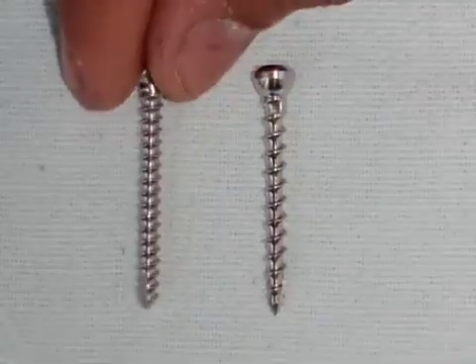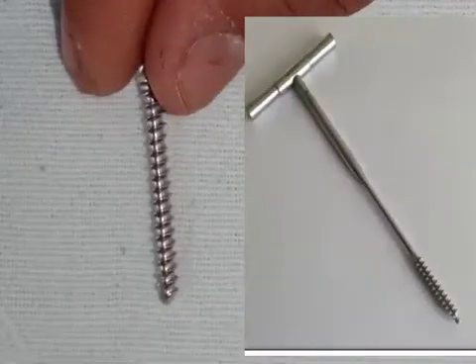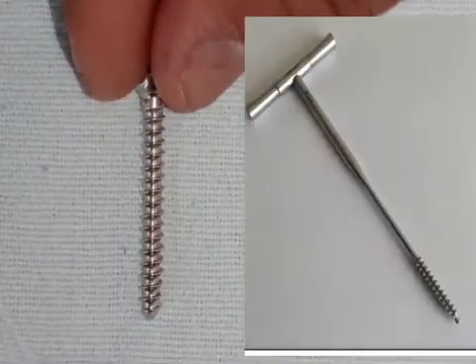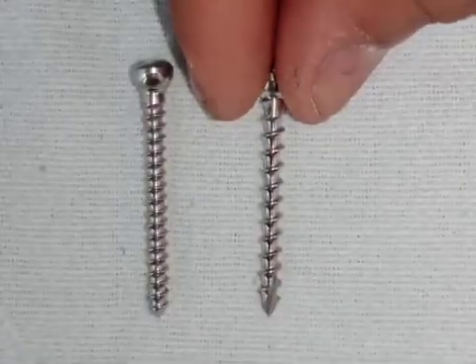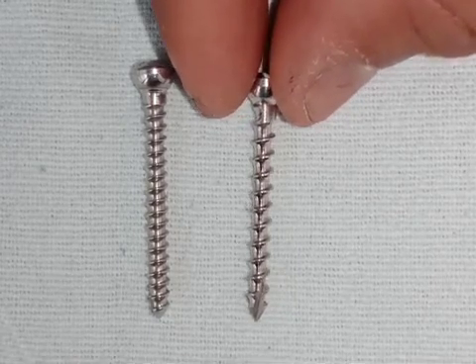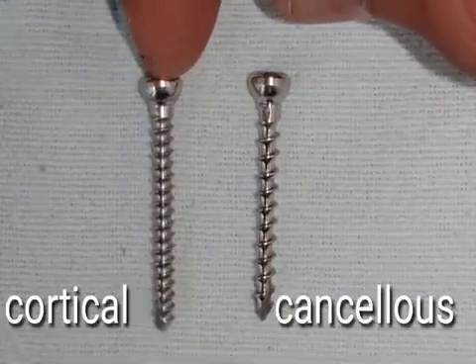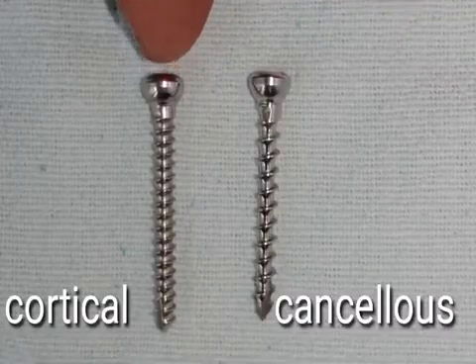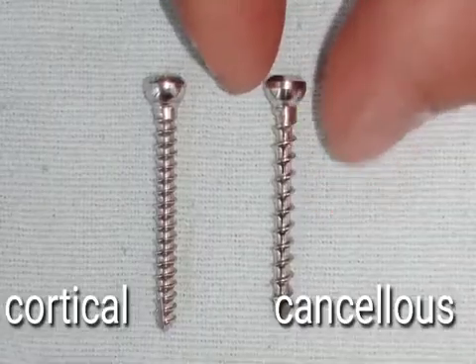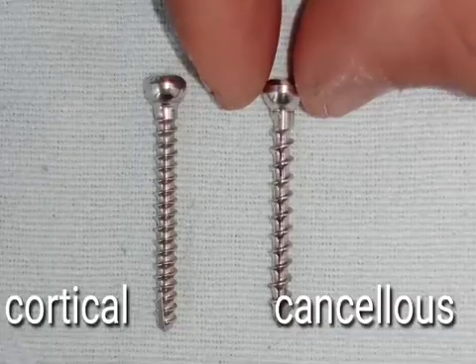The cortical screw cannot be inserted into the bone just like that. You have to use an instrument called a tap, or internal thread cutter, to cut the threads so that the screw can go in easily. The cancellous screw is inserted without a tap because usually the bone is very weak. So the cortical screw is used for strong bones with a tap, and the cancellous screw has very broad, large threads which give a good purchase and is used for cancellous or weak bone.